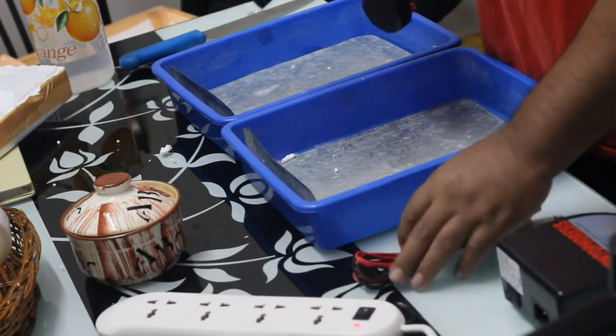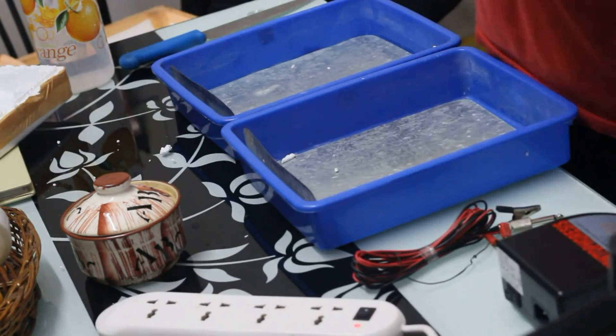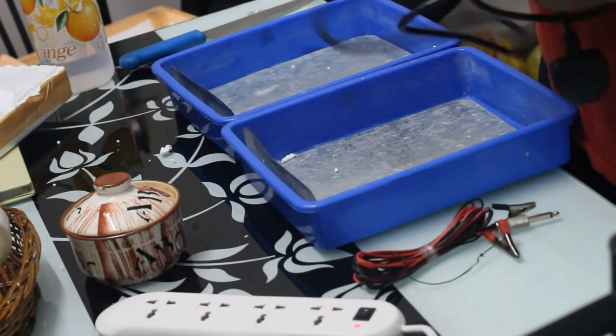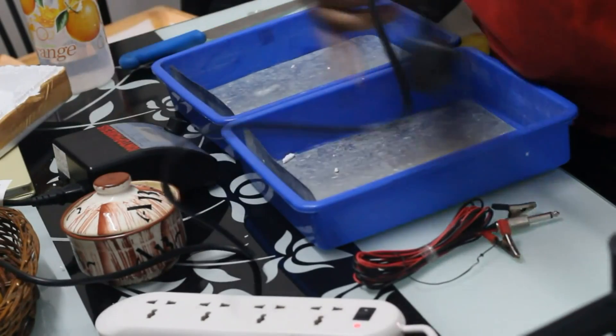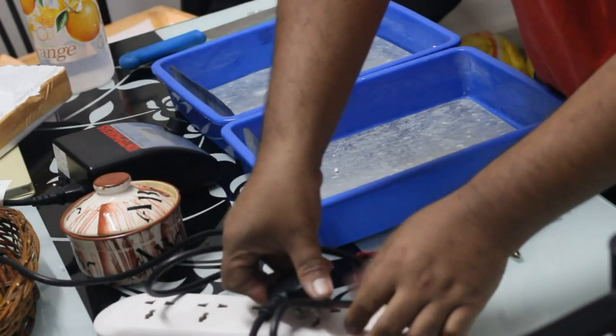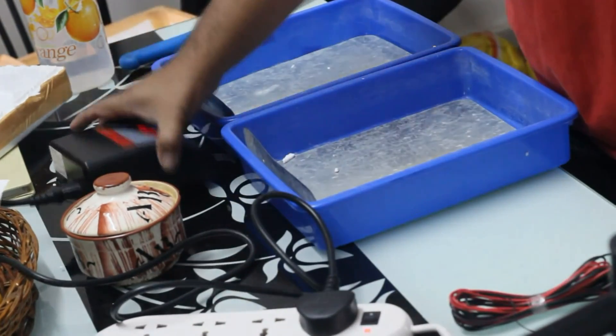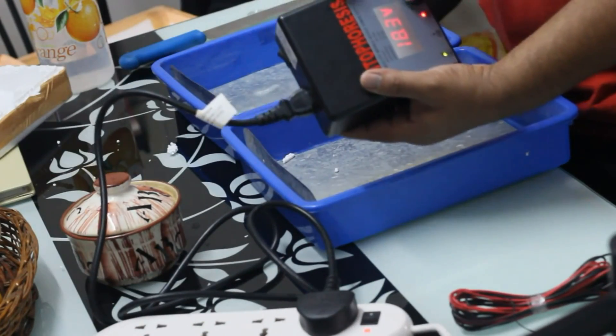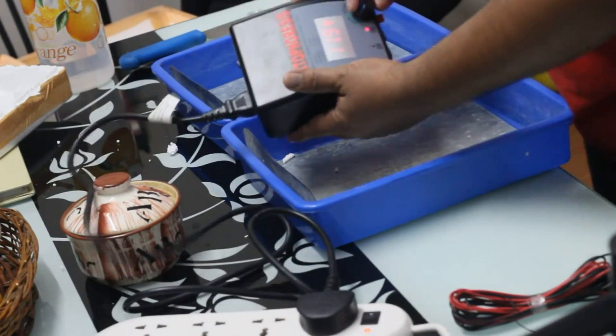You see here a power cord. I'm going to connect this power cord to the device and put it in front of the trays. This power cord is not Indian made. This is American made, so you have to find a plug adapter from Indian to American switch.